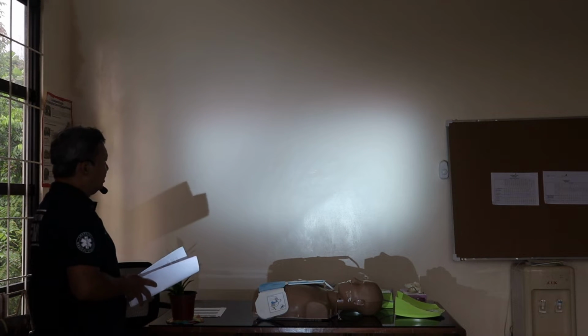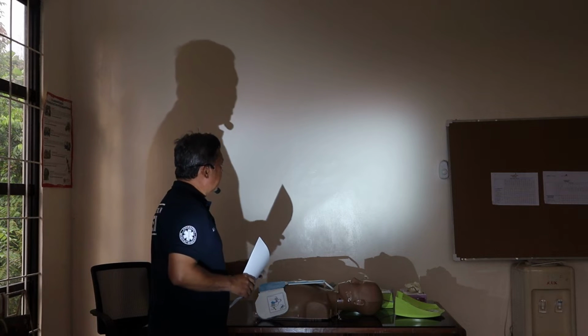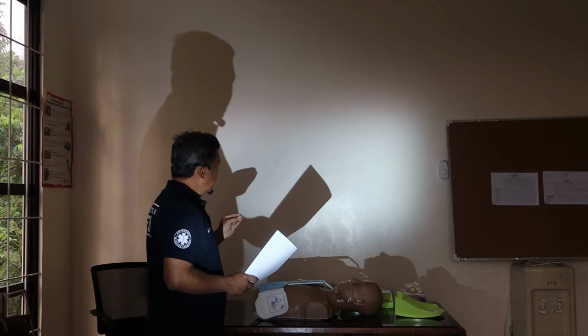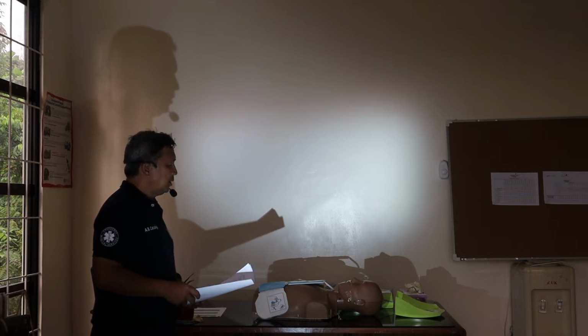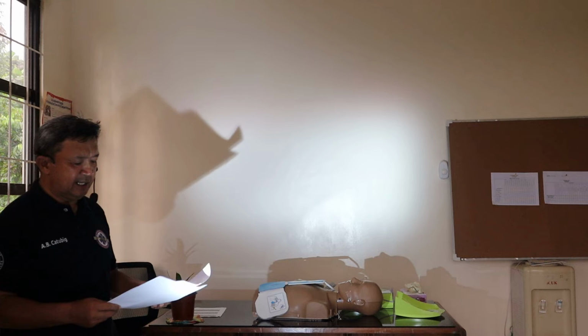Okay, very good. You placed it properly and followed the prompt accurately, and you cleared the area before administering the shock. So very good. I think you're already competent, really competent.